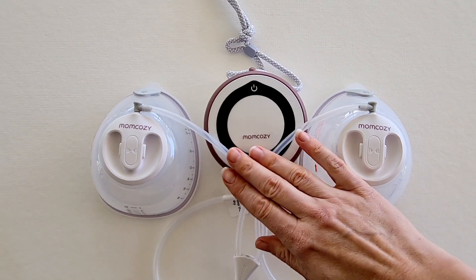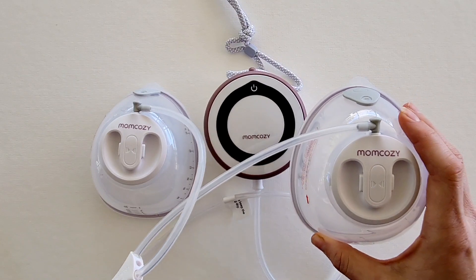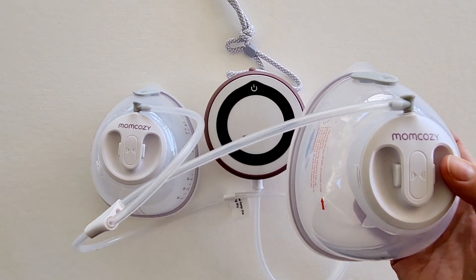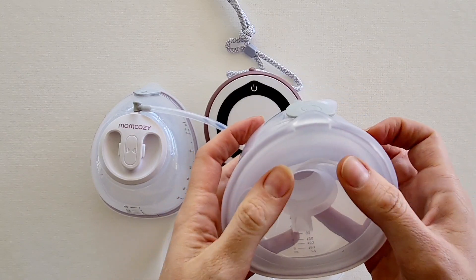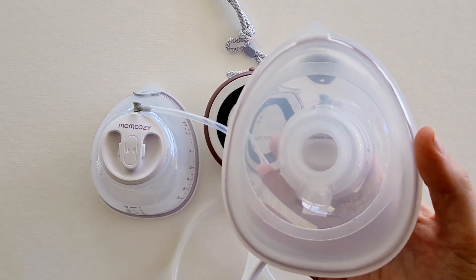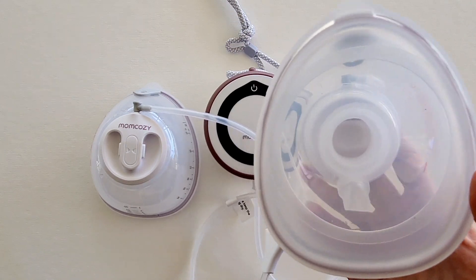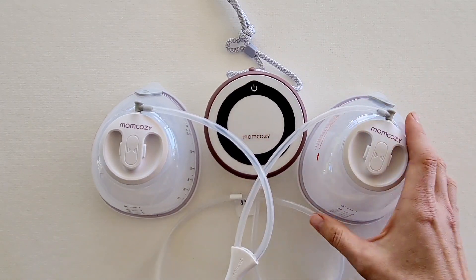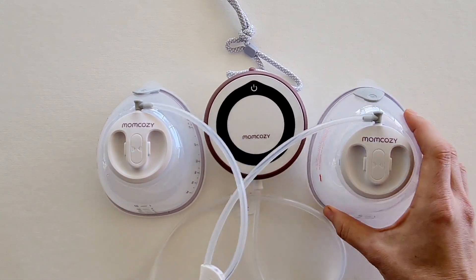Overall, I think this is a really great portable breast pump. I love the high-end features such as the micro vibration, which really does enable you to make the most out of your pumping session, especially paired with the long battery life. This pump also has a second seal on the breast shield flange which provides cushioning and an added seal, helping with both efficiency and comfort. Overall, it's a fantastic pump — just consider whether having a separate motor is something you're okay with, but if not, this is a wonderful pump.